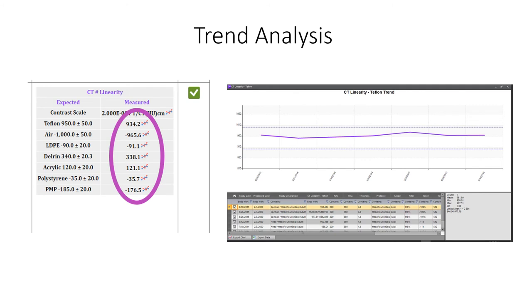Analysis results are output to an HTML file and a PDF file. On the left side of the screen is the results section for the CT linearity measurement from the HTML browser screen. Adjacent to each of the CT sample means is a small scatter plot icon. When clicked, the trend chart for that parameter will display, as shown on the right.